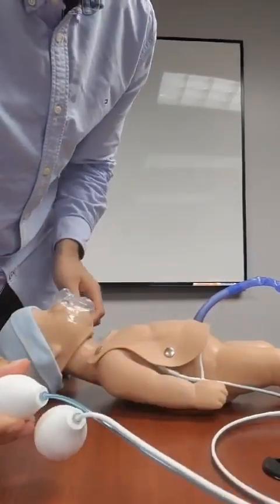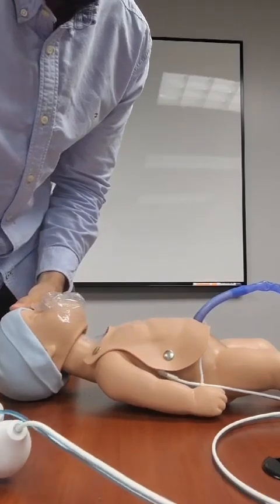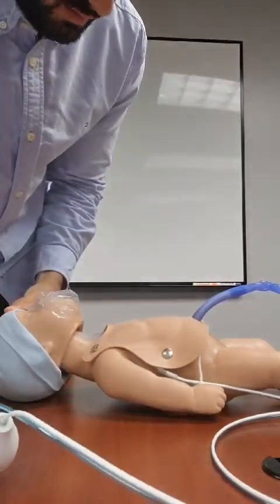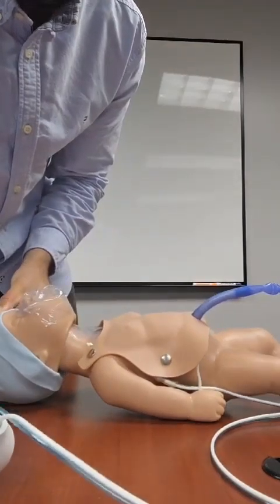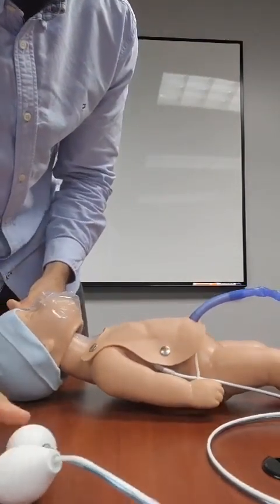The blue tube is used for chest rise and fall, as you can hopefully see a little bit. There we go.